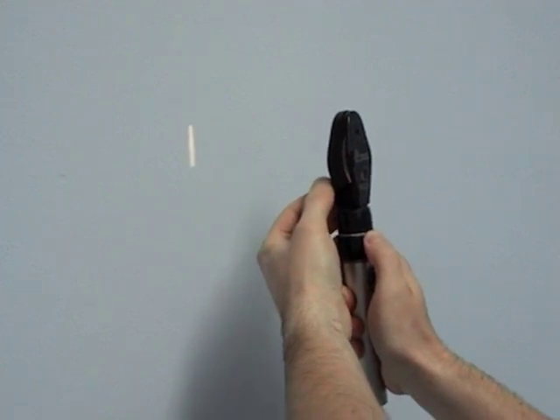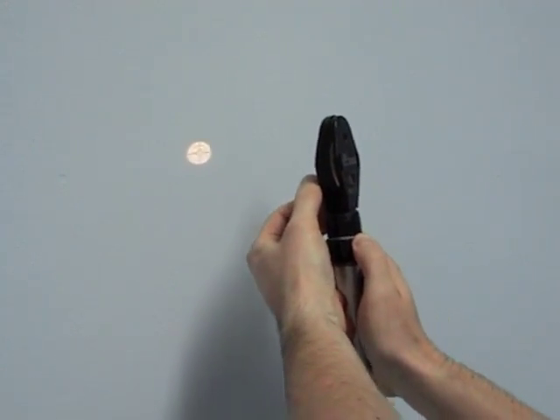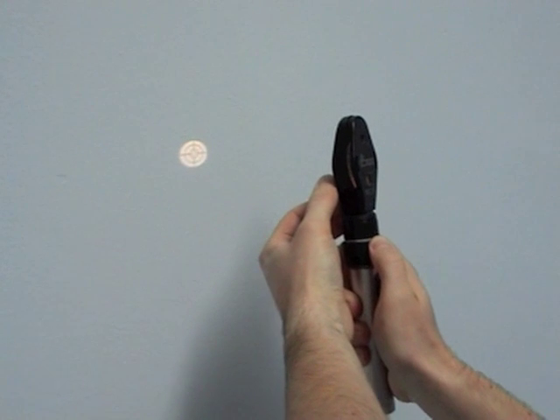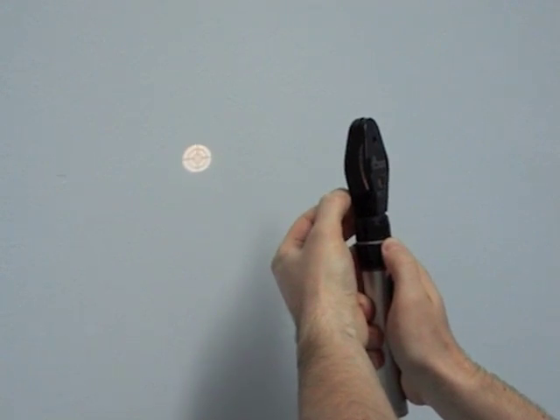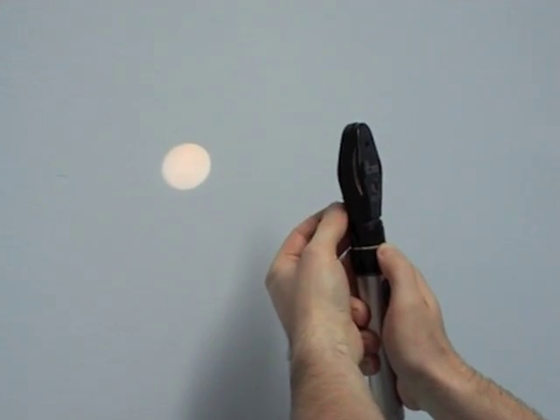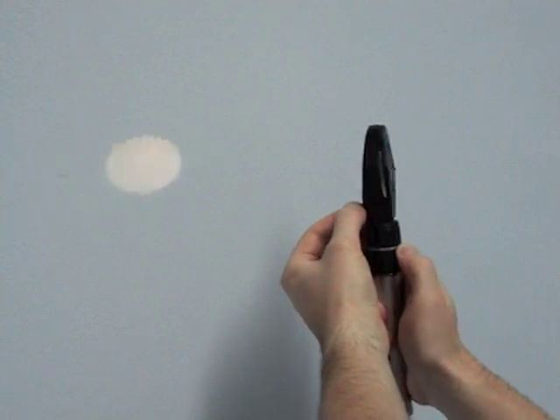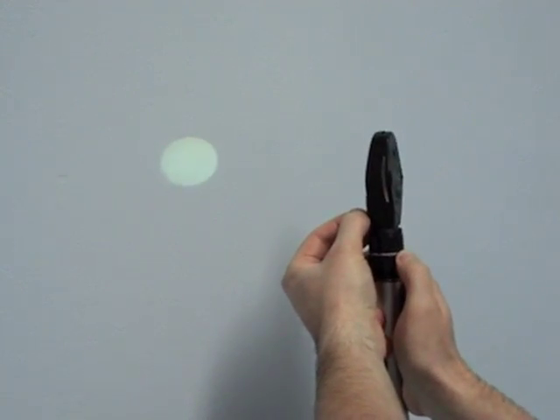Similarly, the size of the aperture can be altered using the same controls. A smaller light may be more useful in a patient who has not had dilating drops instilled or has a small pupil.